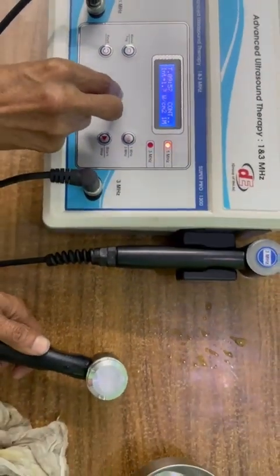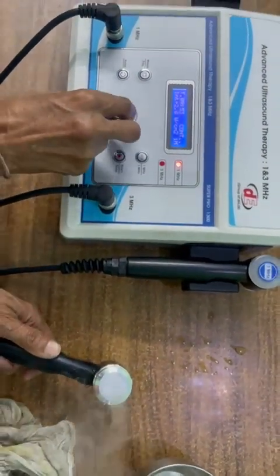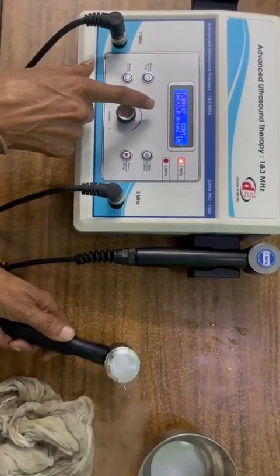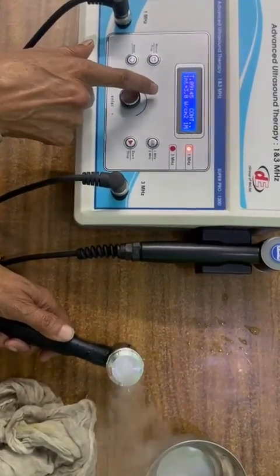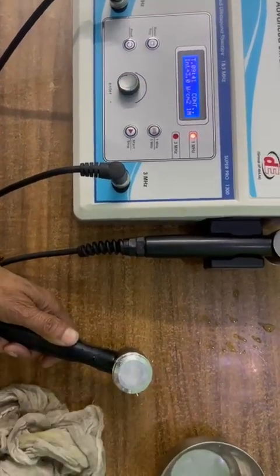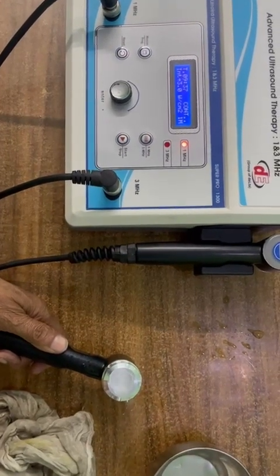Now you can see it is working in 1 MHz. You can increase up to intensity 3, 3 watts. Now it is on. This is in 1 MHz mode, working perfectly.